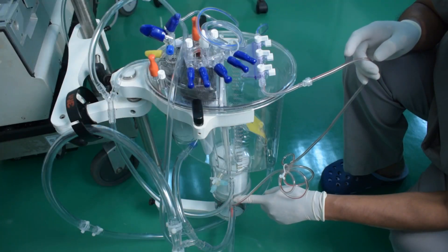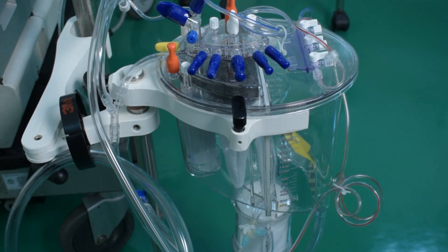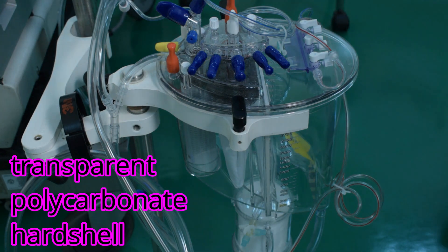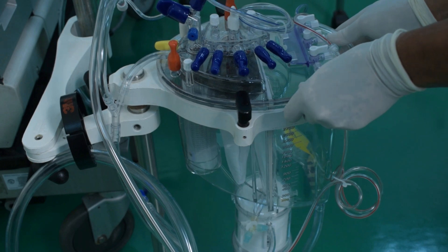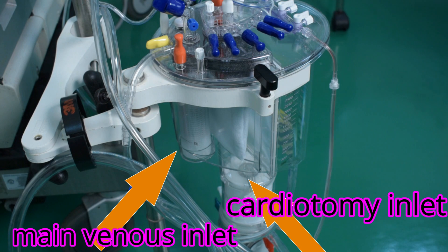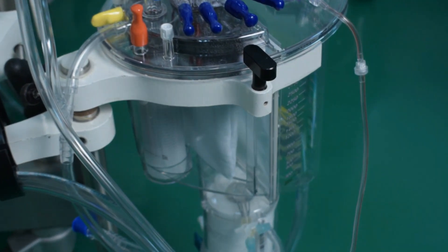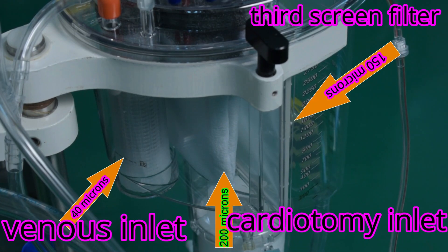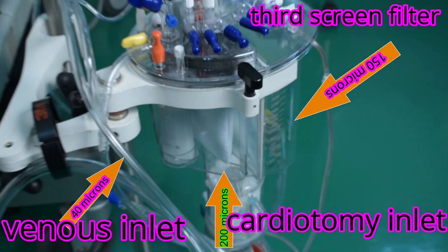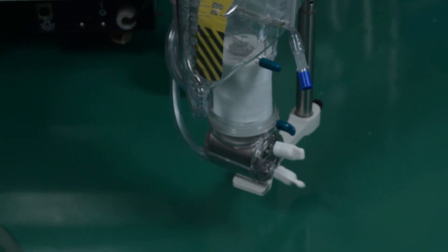The hard shell reservoir, or open system, usually comprises a polycarbonate housing — a hard shell, usually transparent — with a depth filter and a polyurethane defoamer, and usually incorporates a cardiotomy reservoir and a defoaming compartment. Previously, the cardiotomy reservoir used to come as a separate unit, but in the current era, the cardiotomy unit is incorporated within the reservoir.